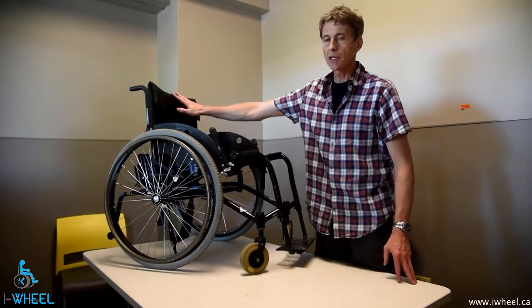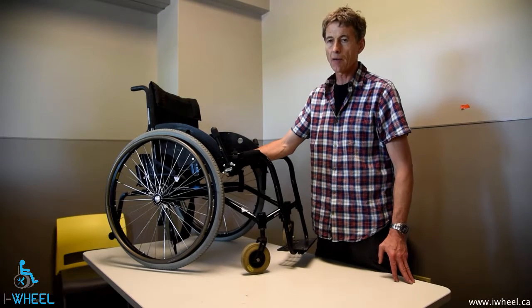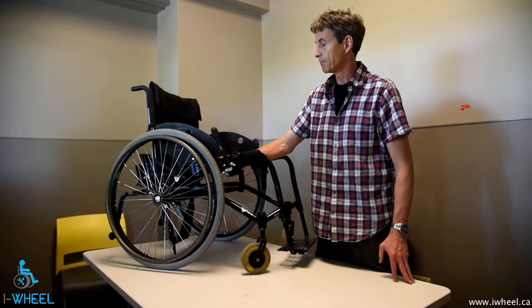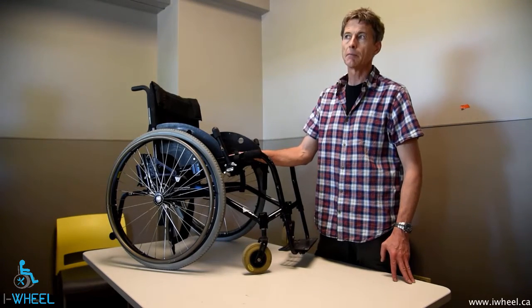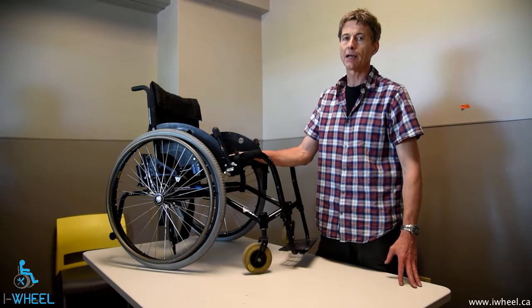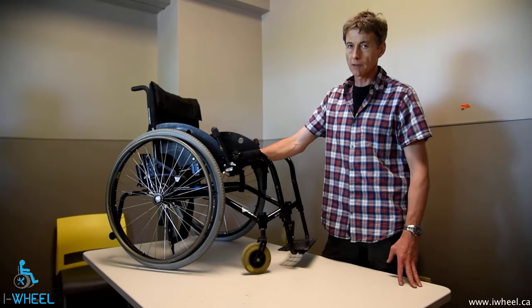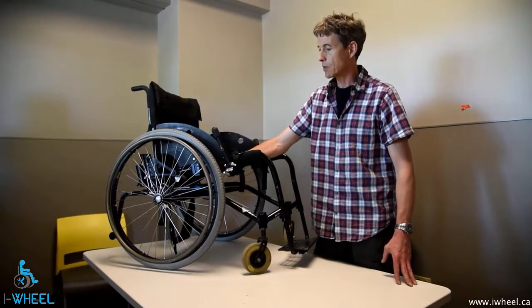For cleaning the upholstery, it's just a case of using mild soap and water to wipe it down and finish off with water. You want to rinse out as much of the soap as you can. Keeping your chair clean makes it easier to keep on top of rather than letting it get really bad and having to have a blitz at the chair. Water will not hurt it — the only problem is that you've got a lot of down time while the chair dries out. So: upholstery, mild soap and water.